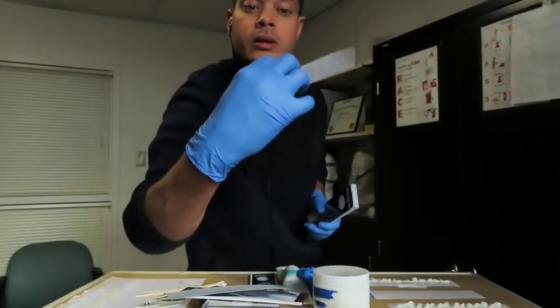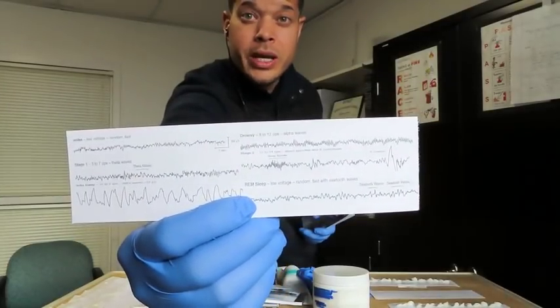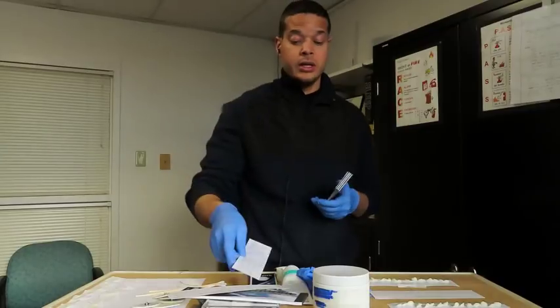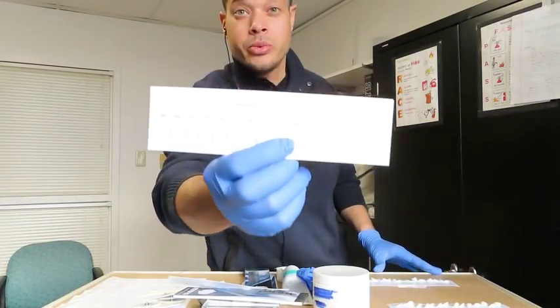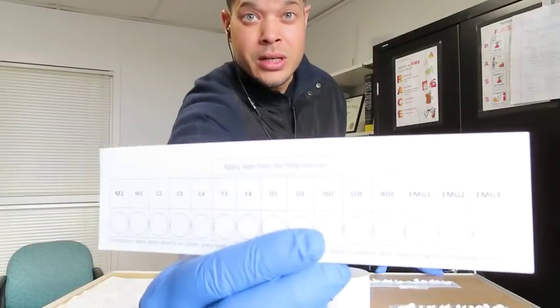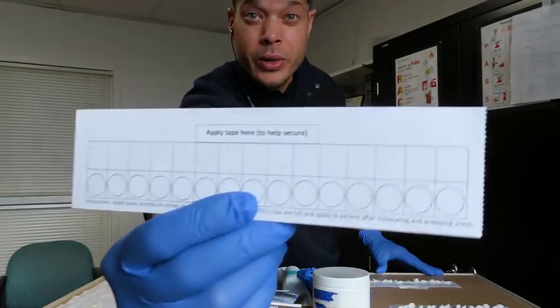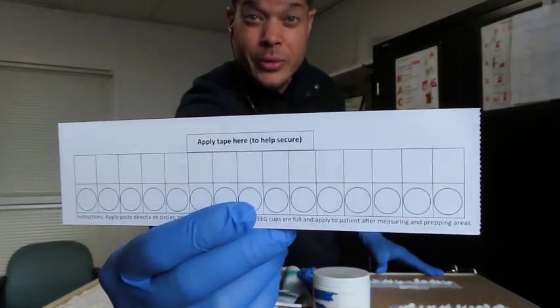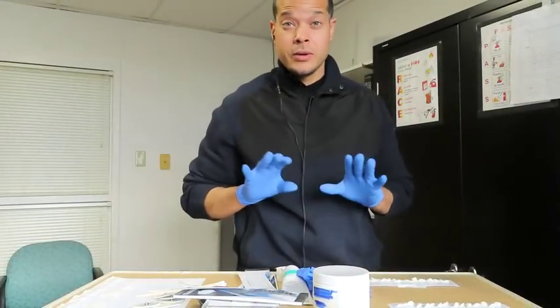Here is a back, kind of an education tool you can use to show the patients, and that's just one model. There's another one where there's either a side where it's pre-prepped or preset as far as the input labels. I'm not sure how the camera's picking that up. And here's the other back part where you can use it and add your own labels to it. And that's that one there. So that's mainly for the sleep.